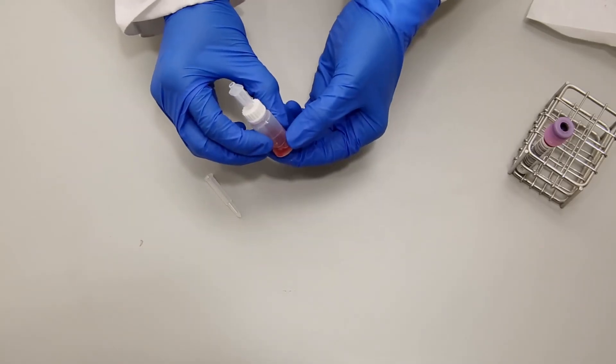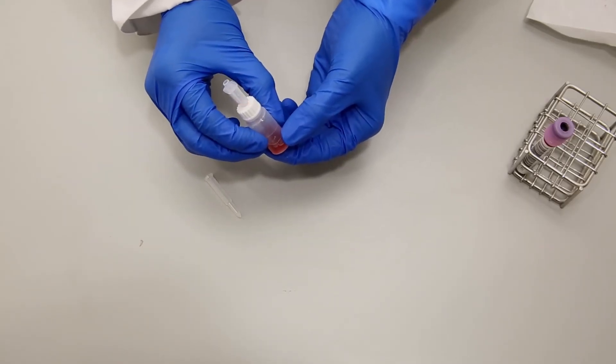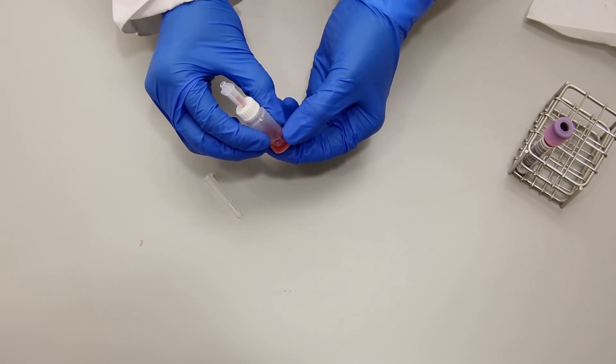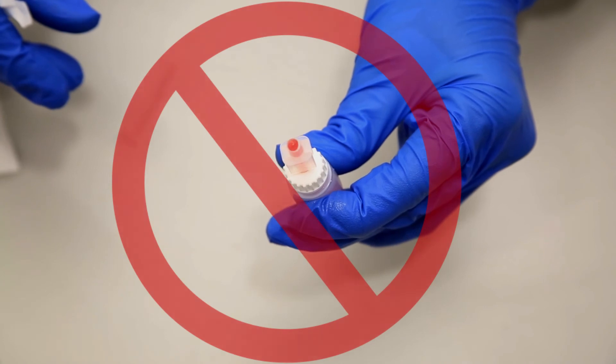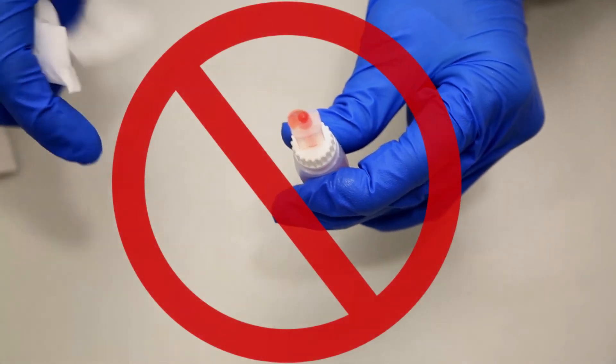Gently squeeze and release the reservoir again to rinse the pipet two or three times to make sure the pipet is adequately rinsed. Be careful not to allow fluid to overflow the reservoir when it is squeezed as this will affect the count.